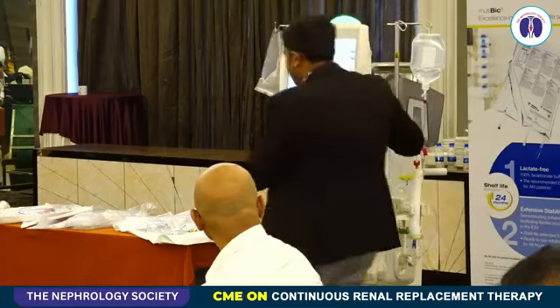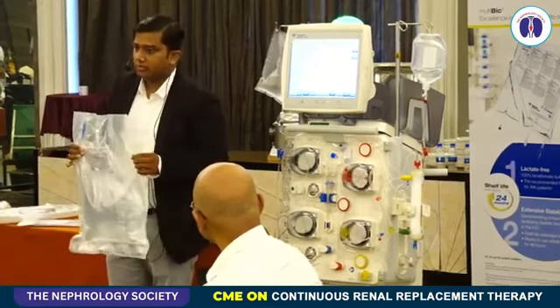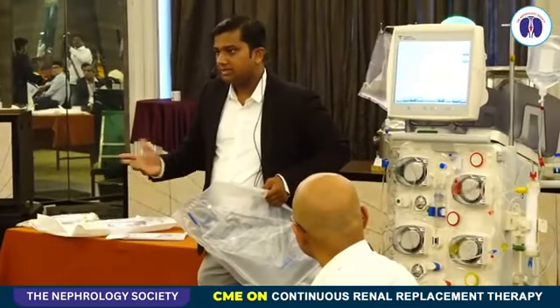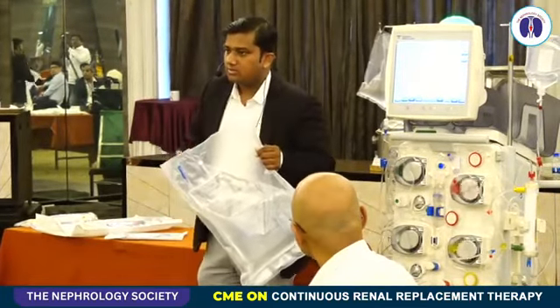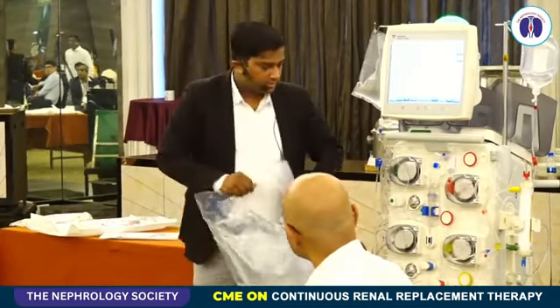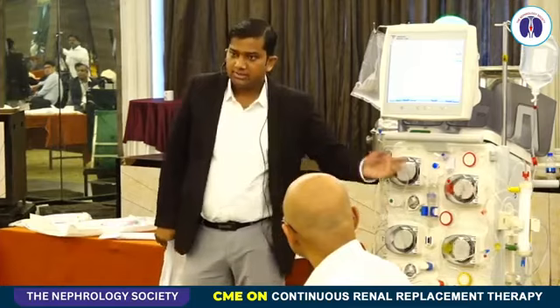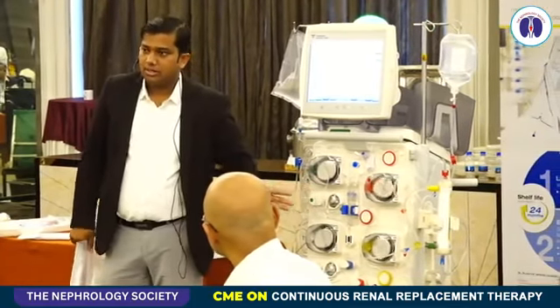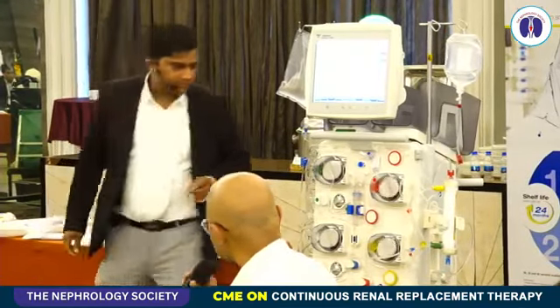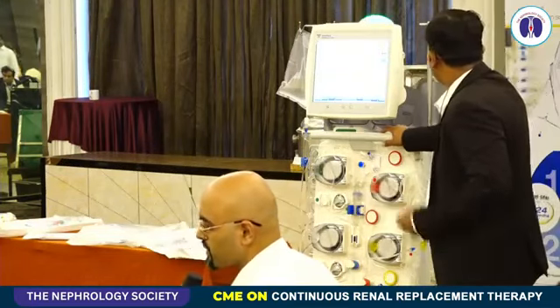The fluid, the 5 liter solution bag, will cost you somewhere around 2,800 rupees. Let's say you are doing 1 liter per hour each of dialysate and substitute, you will require 10 bags a day. So this is how you can calculate it. The life of the circuit is 72 hours. This filter can last for 3 days, including the circuit, in the normal course, if it's not getting clogged. So roughly 50,000 on day one, and probably on subsequent days, just for the fluid, 30 to 40,000 it may come.